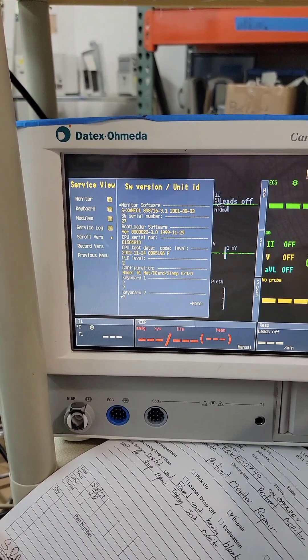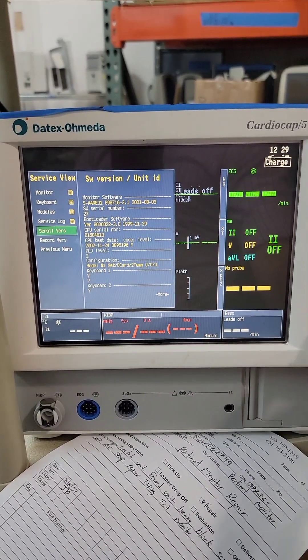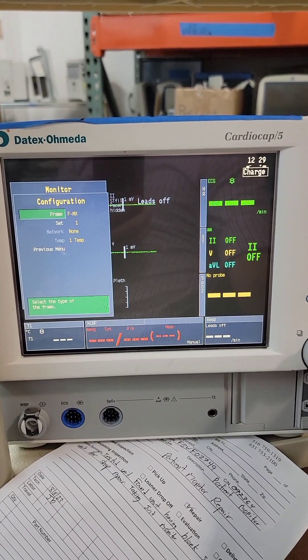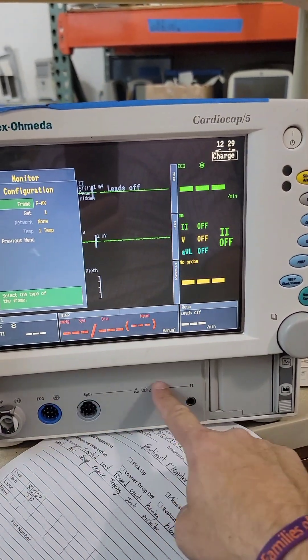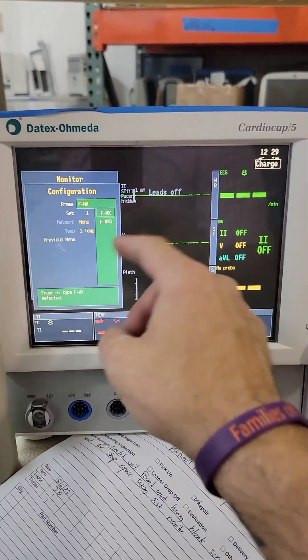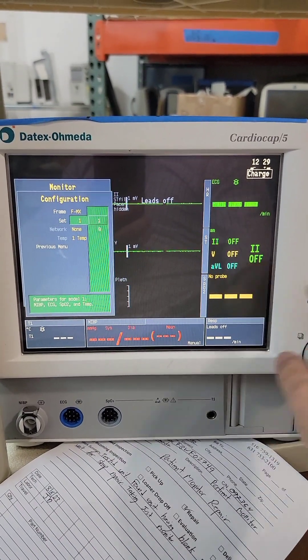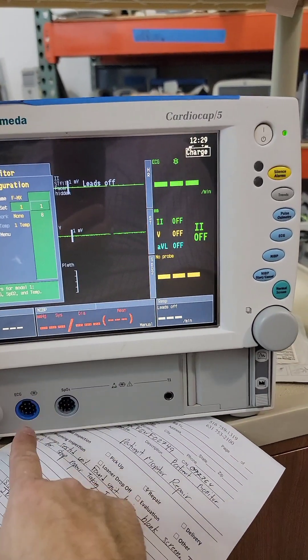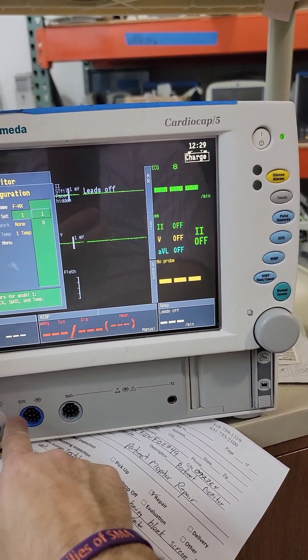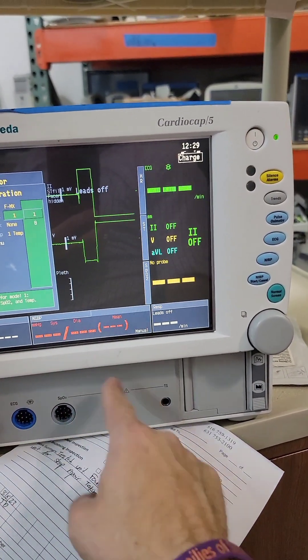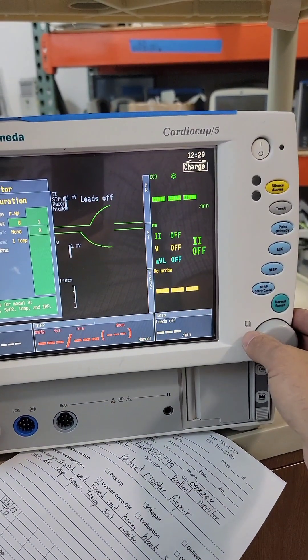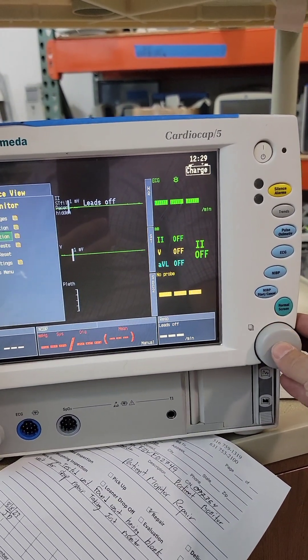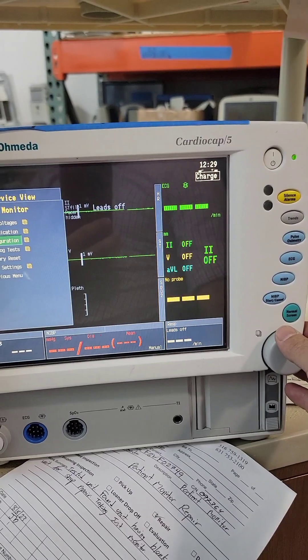Now while we're here, let's go to Monitor Config. This is what we're looking for. There's no gas, so we stay on MX. These are the options: NIBP, ECG, SpO2, one temp — that would be correct. Set 8 would have other stuff, but this one doesn't have that, so stick with one. One temperature. Now we have the correct configuration.